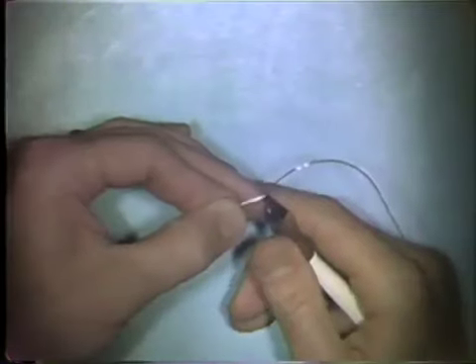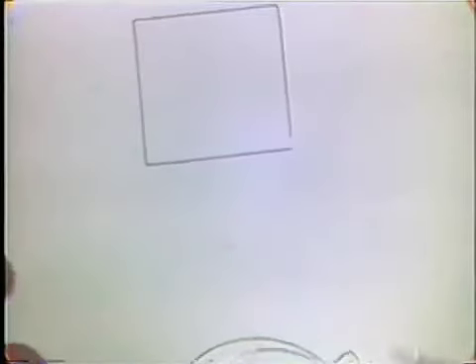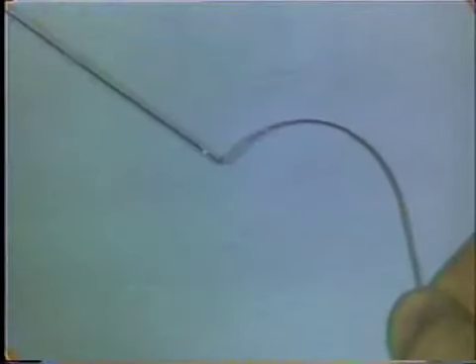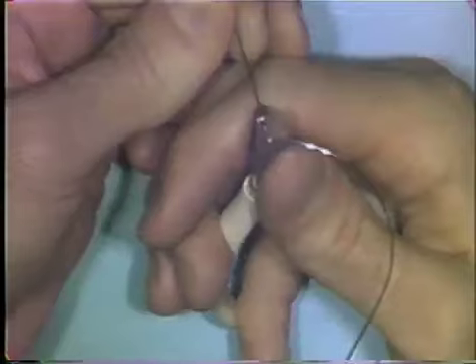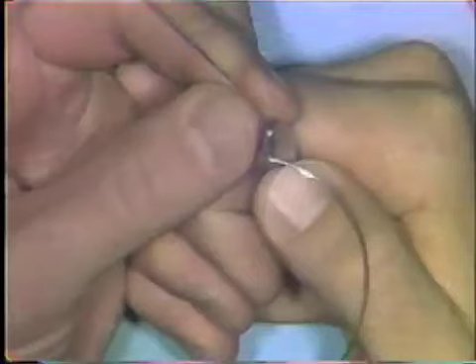Now we can complete the 90-degree bend to form the first half of the loop. You place the wire back in the plier beaks, orient it correctly, and increase the bend. You try the wire back on the pattern. If you're satisfied with the bend, you mark the wire at the point where the curve of the loop begins. You place the wire back in the pliers and begin to form the loop by placing the wire up in the larger round portion of the round beak of the plier. Start the first bend directly over the mark that you made, and with a series of small bends, form the loop.